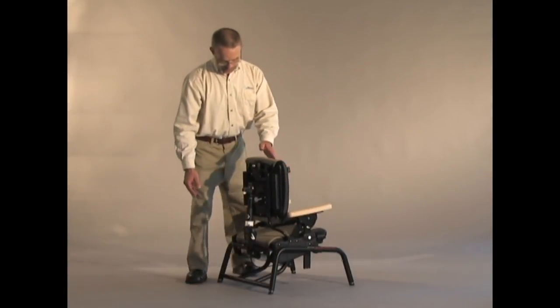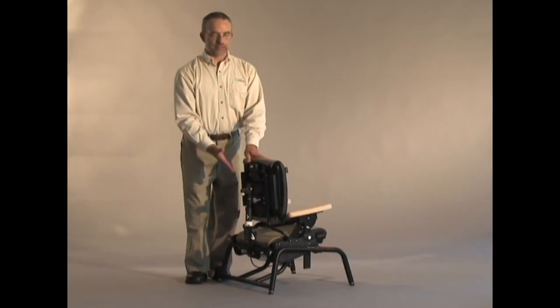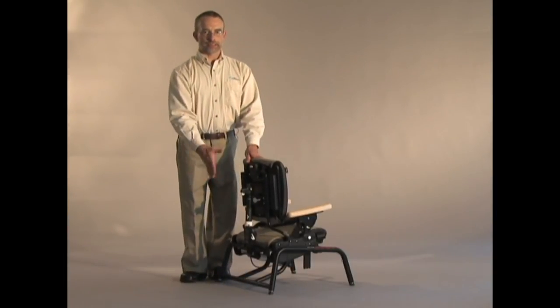So it's something you will be able to adjust. You can lock out the backrest or lock out the seat or enable both.